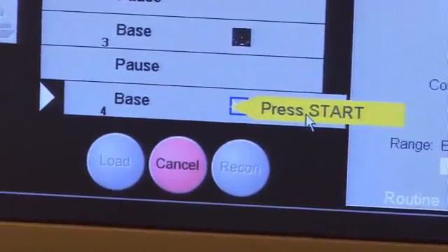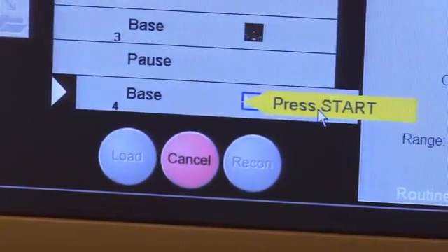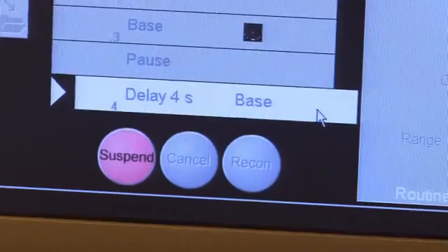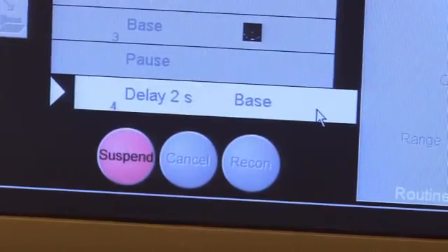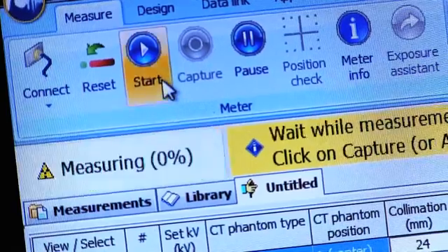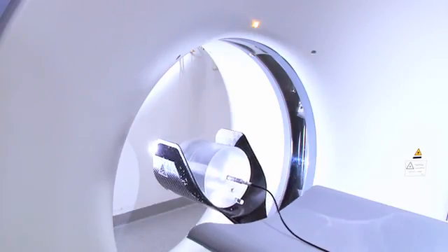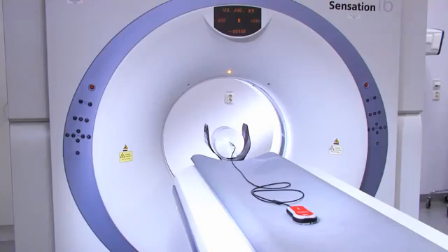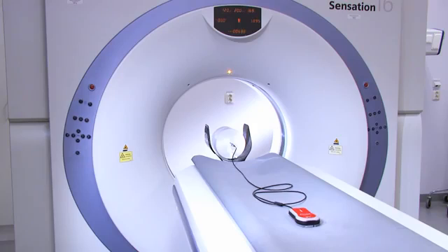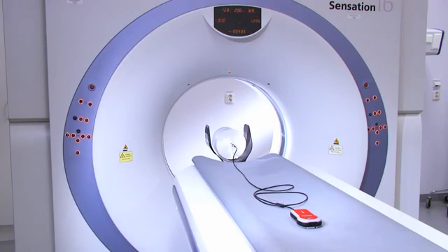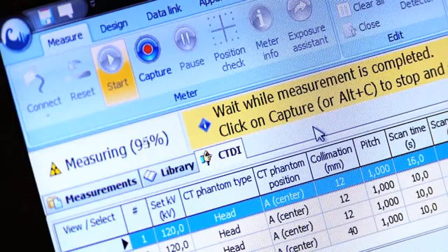We are now ready to do the first measurement. Wait for the delay that occurs in some CTs. You then start the measurement process for both the CT and the Ocean software at the same time. The probe will move through the X-ray beam and you will be able to monitor progress as it counts up to 100%.